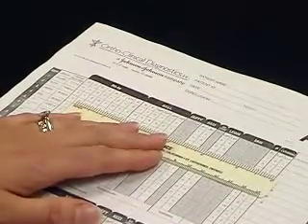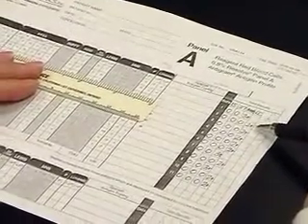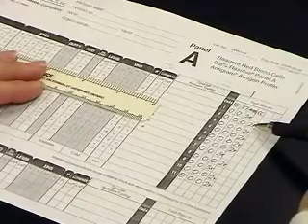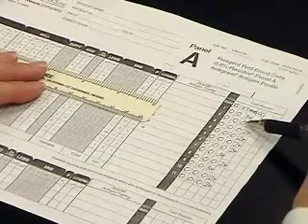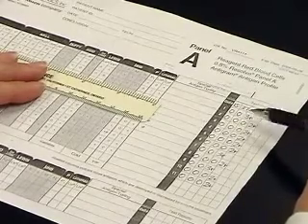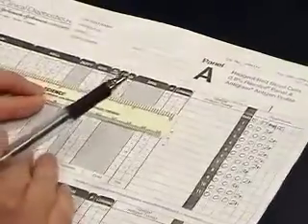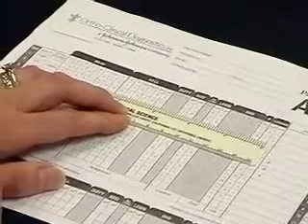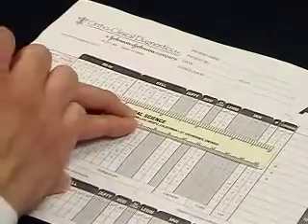Our results are in this column over here. We look across to see where our negative reacting cells are. In this instance, our first negative reacting cell is cell number 2. It is negative in all 3 phases of testing. Using a straight edge, we isolate that line, cell number 2, and look across.